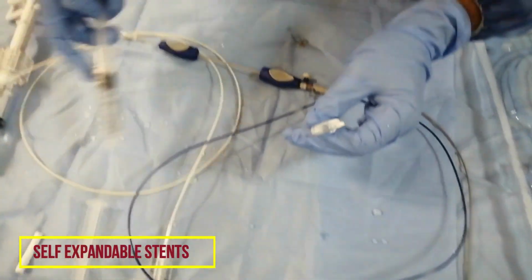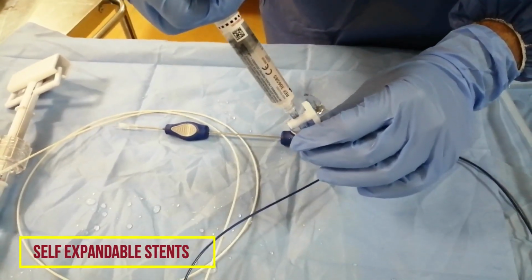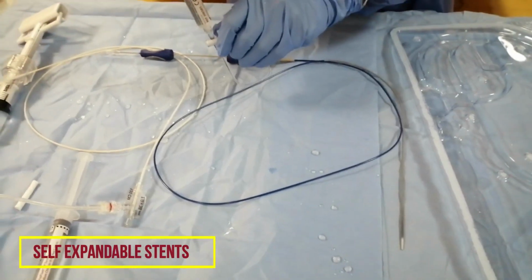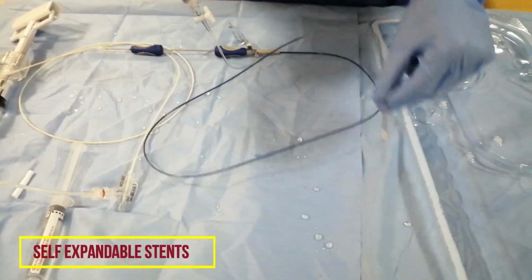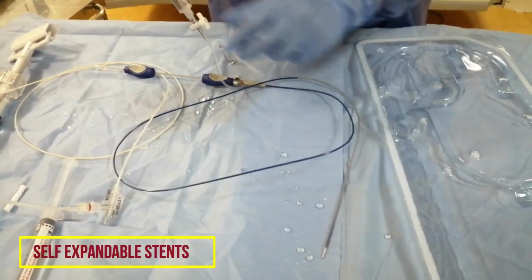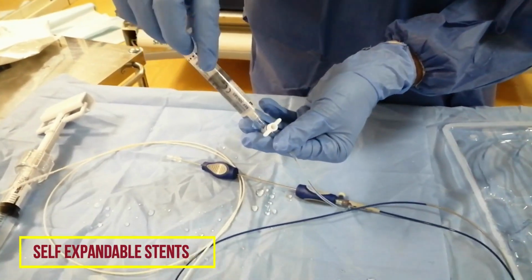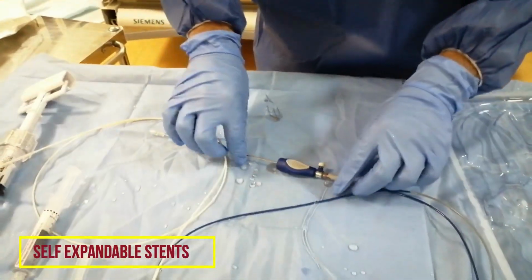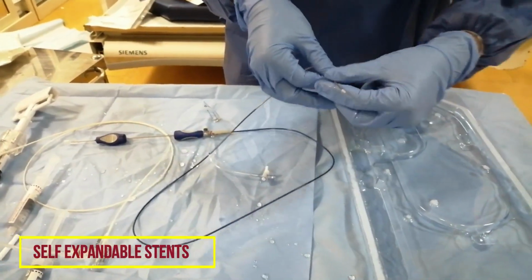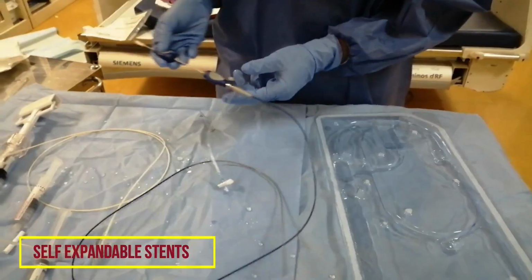Before connecting to the wire, we will flush this line. You can see it is dripping from this line, so that means it is already primed. Flushing done, you close the lumen here and remove the saline, and now you load the wire into this port and the wire will come out through this area. Okay, now this is ready.